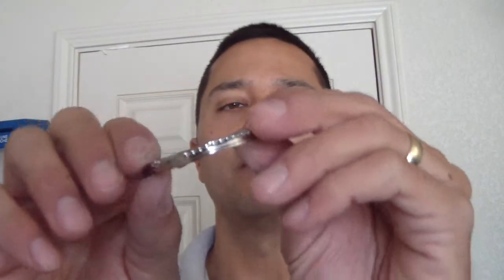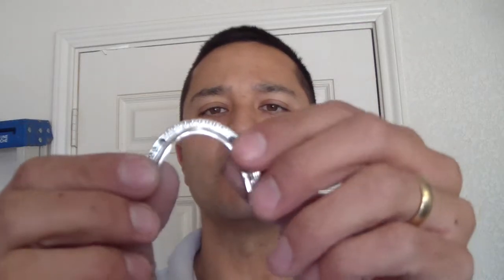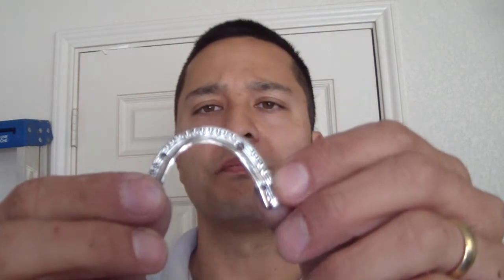This went to 3i. We elected to use titanium because of the preciseness of the fit, but also the weight. This is incredibly light, even compared to a cast gold bar that is perhaps half the length of this. It's super light.